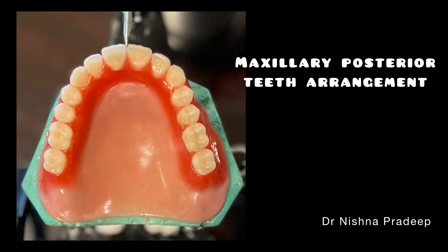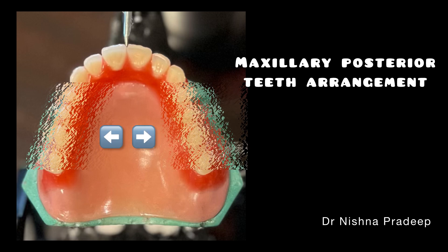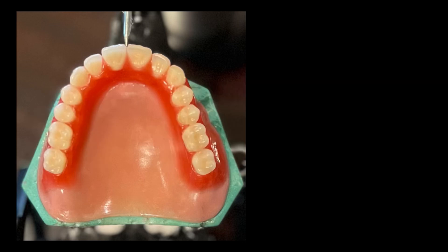Hello, this is the third video regarding teeth arrangement. After the anterior teeth arrangement is completed satisfactorily, we can proceed to arrange maxillary posterior teeth. While proceeding with maxillary teeth arrangement, please make sure about the following.